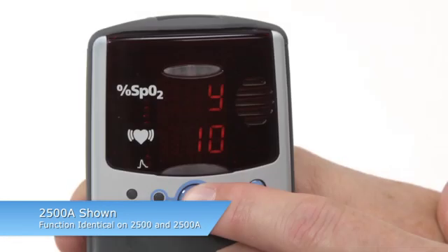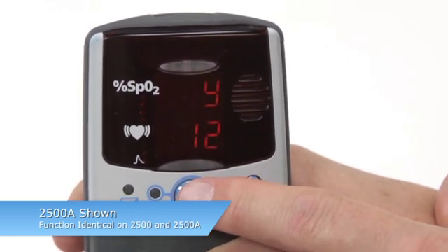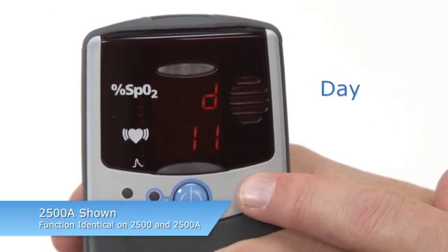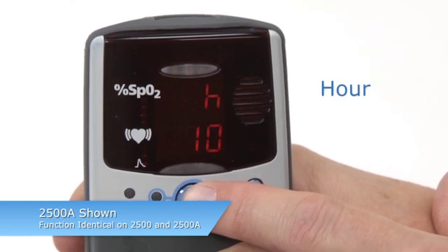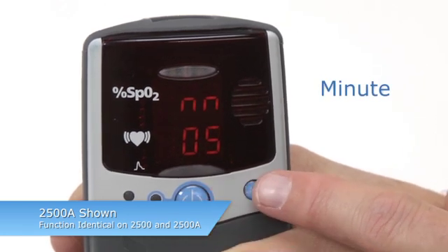Year, month, day, hour, and minute will appear in that order as you adjust them. Change the value by pressing the Advance button until the desired value appears, and then press On-Off to set that value. The next value will then appear. You can also scroll through values by pressing and holding the Advance button. Once you set the minute value for the clock, you will exit setup mode.